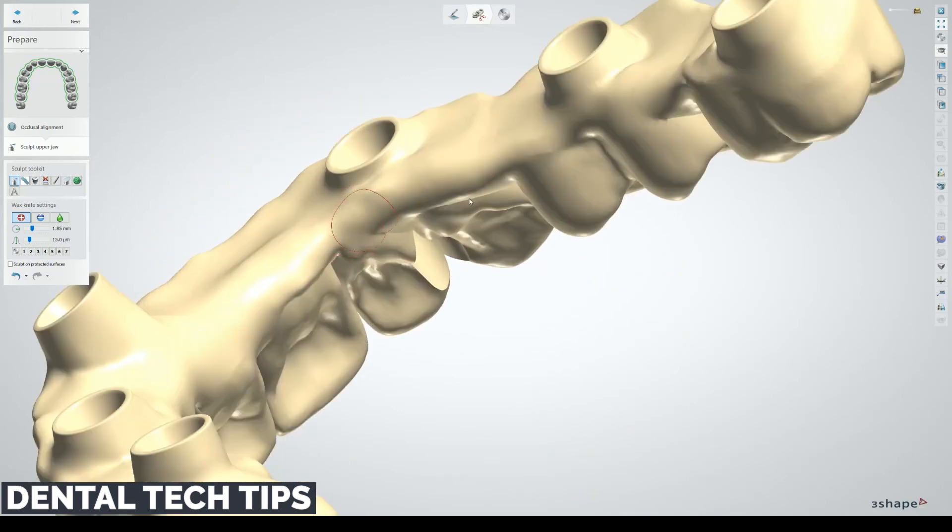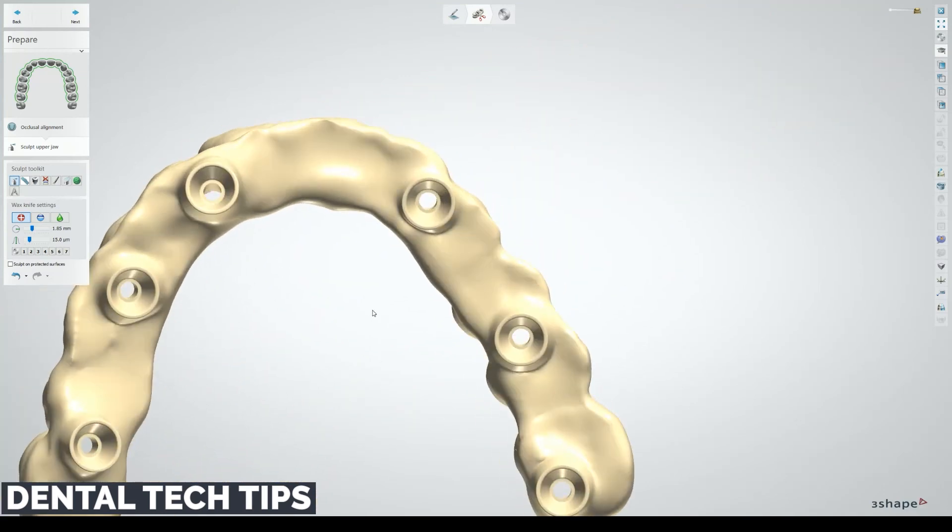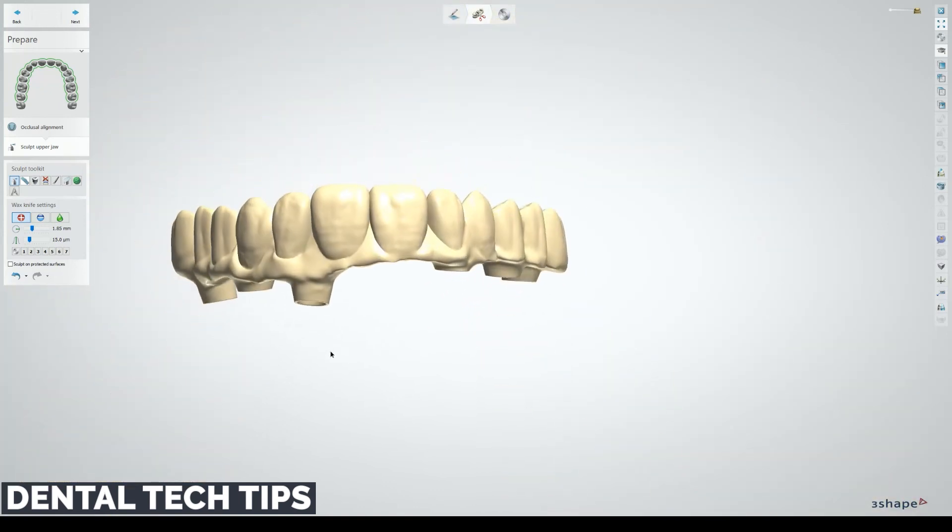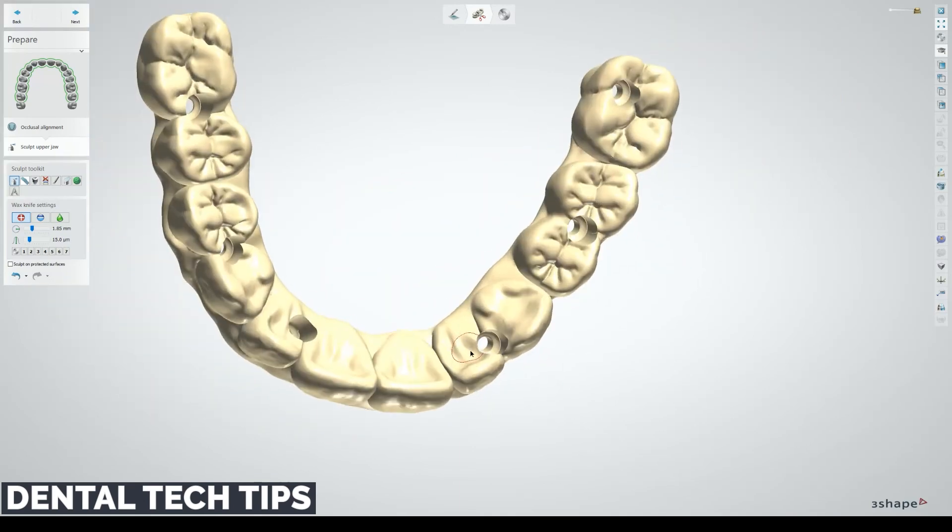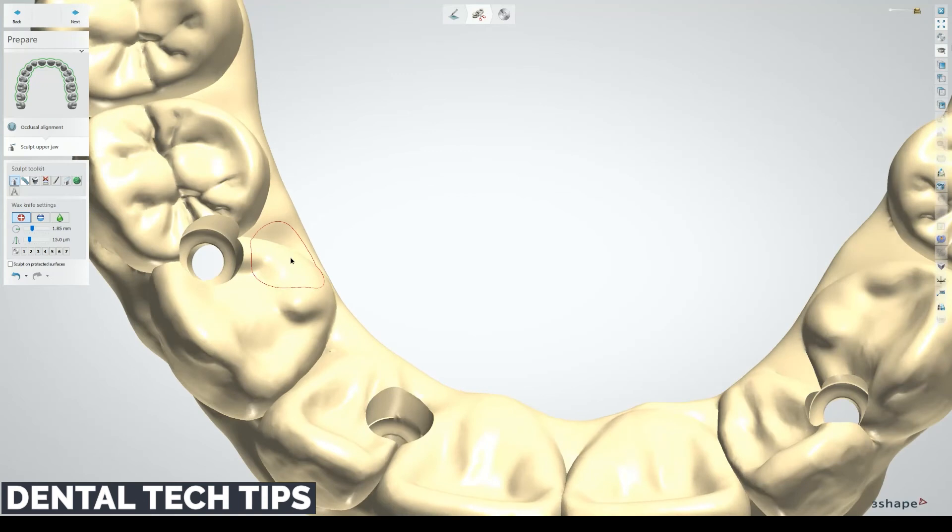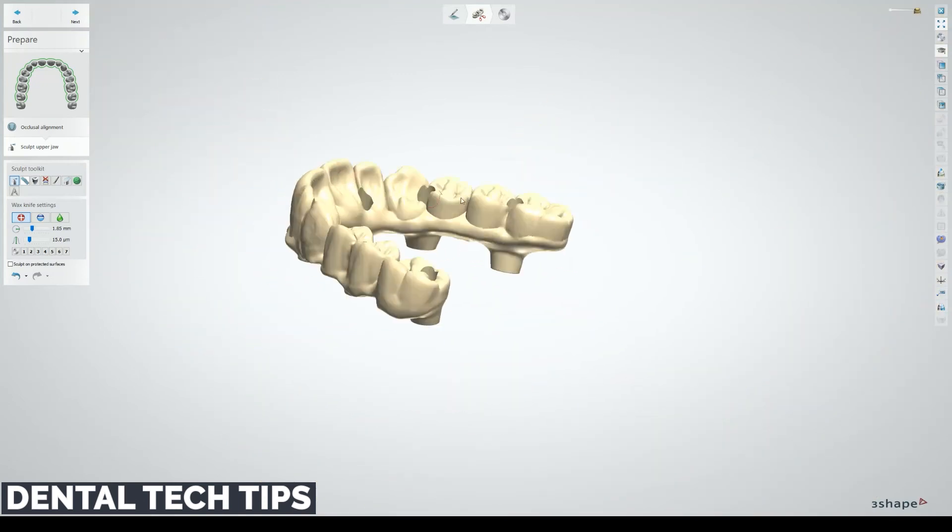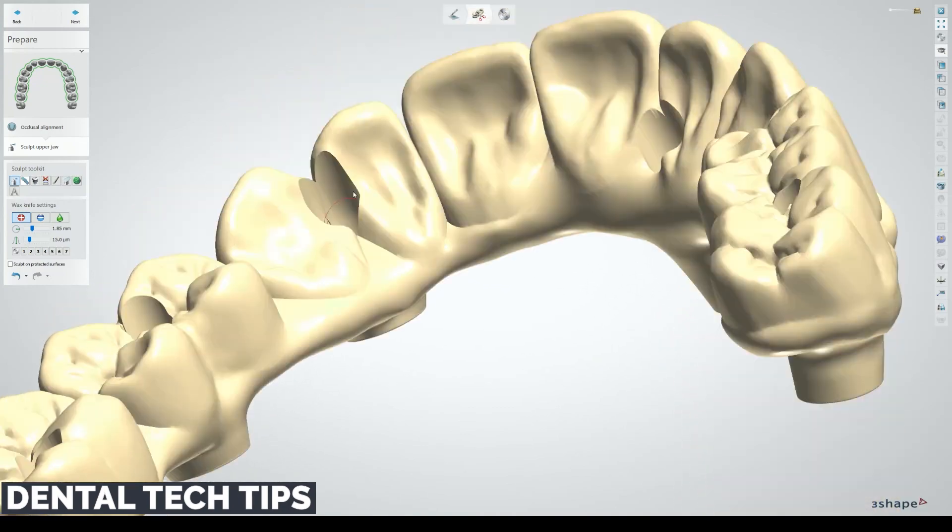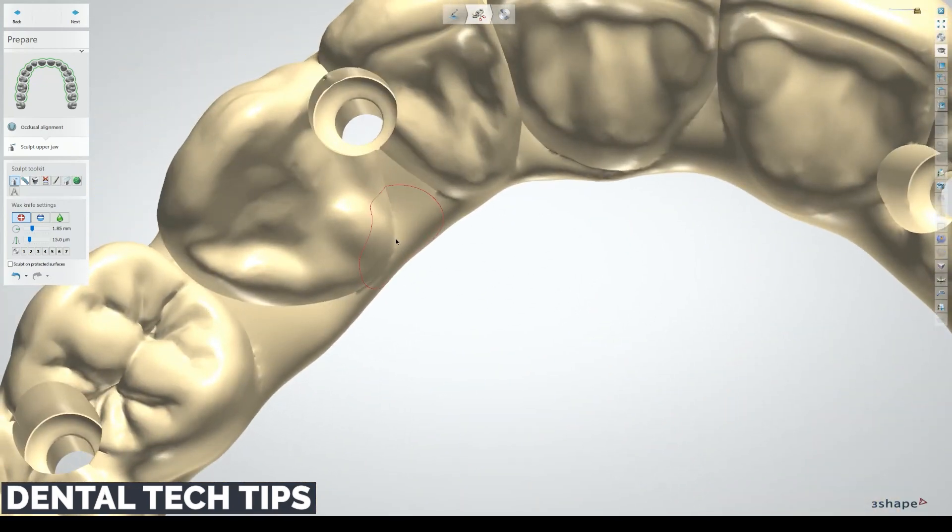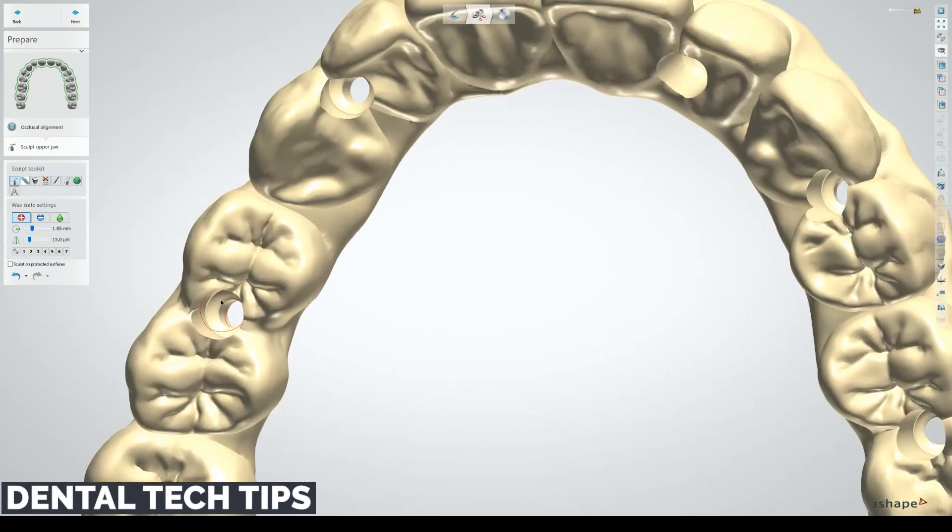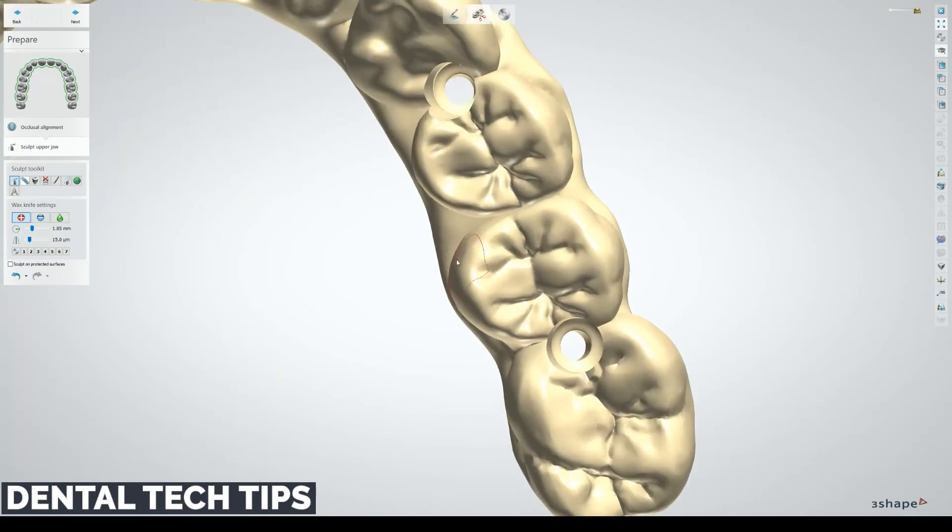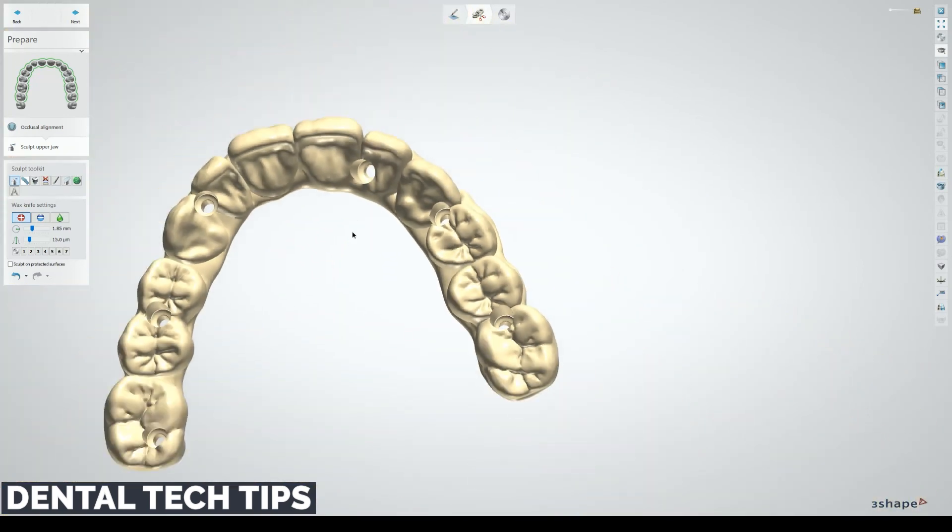Just kind of looking around, seeing anything else that may be kind of thinner or compromised. I think that's pretty good though. At this point, there's this little thing here. That's not going to interfere with the screw seating at all, not the end of the world. This here, that looks pretty good. Seems pretty thick. And this spot here is pretty good as well.